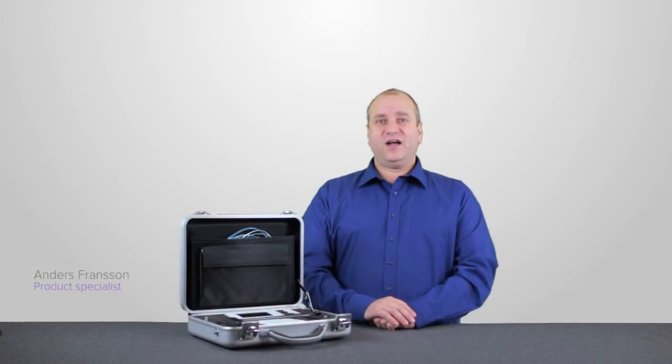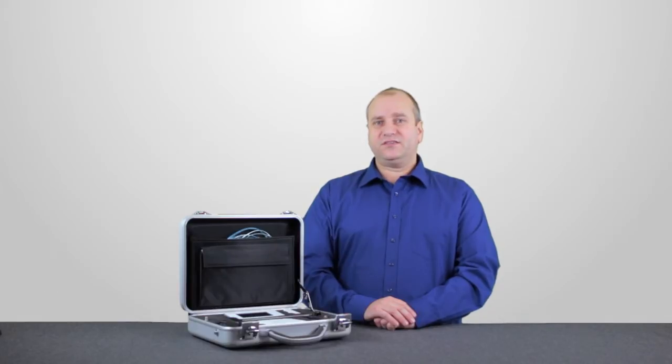Hi, in this video I want to show you the X2 system, an instrument used for quality assurance of diagnostic x-ray equipment.